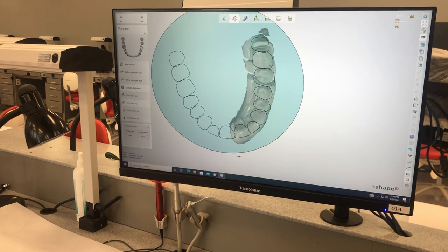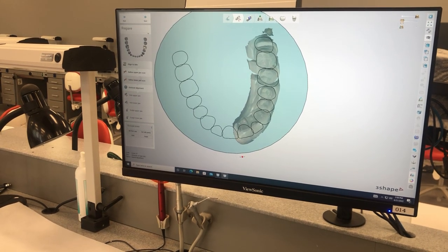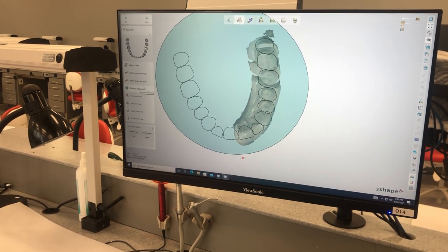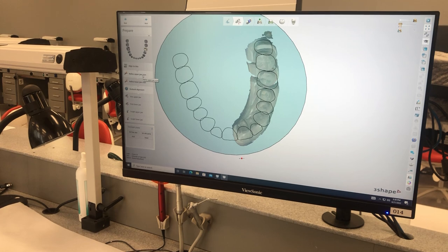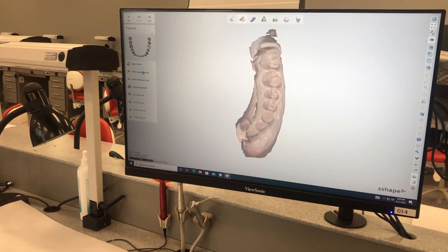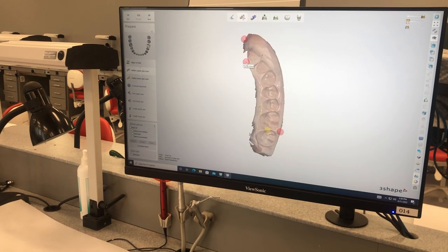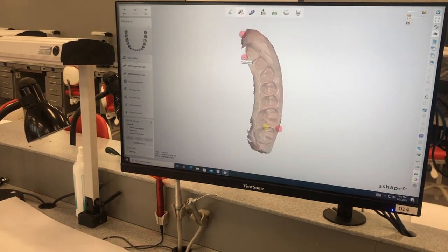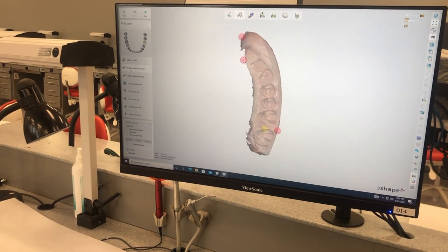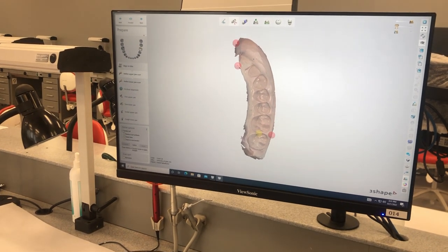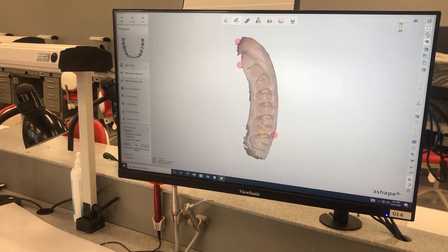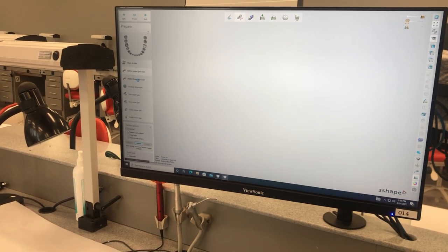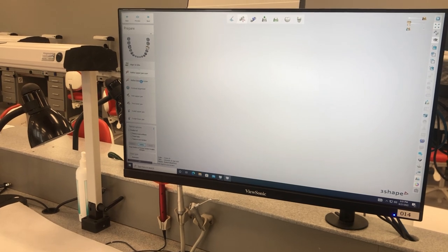You do want to make sure that as you're working your way down here, it takes you straight to occlusal alignment. I find that it's good to refine the upper jaw. It'll show you areas, this little flying island they call it, that aren't connected that are going to give you errors later. And you just click select all and then refine.